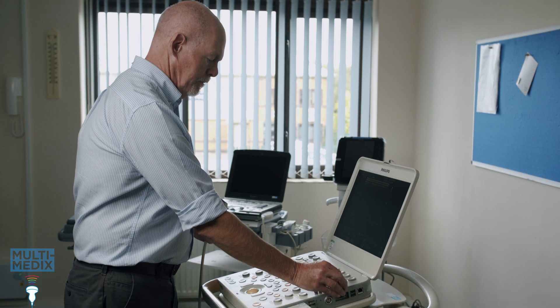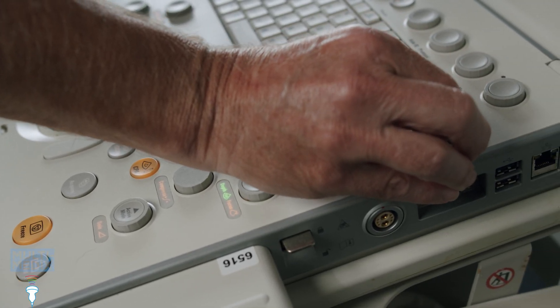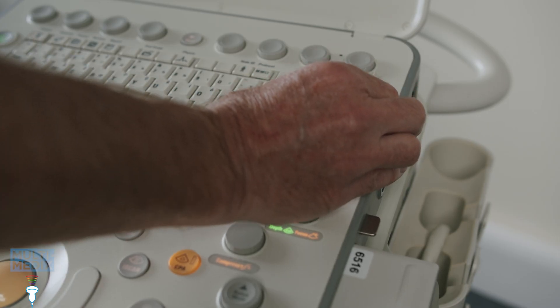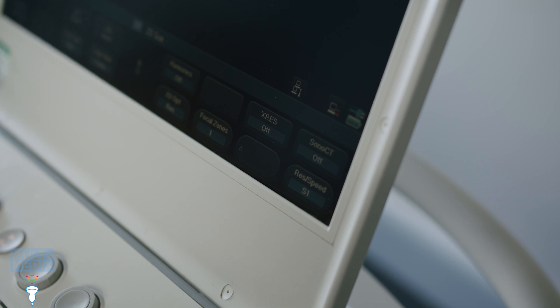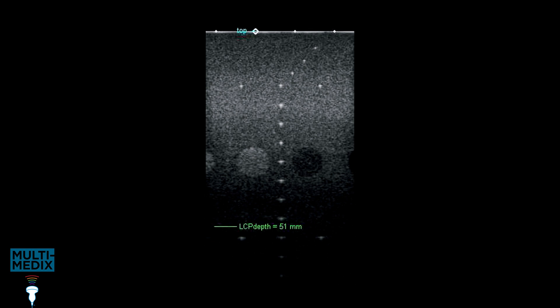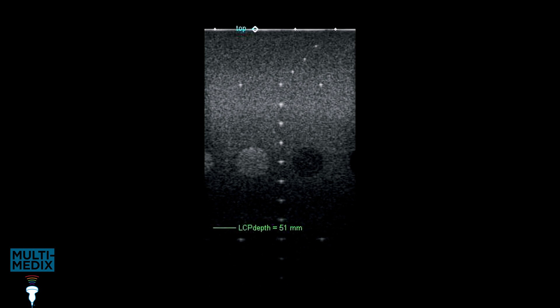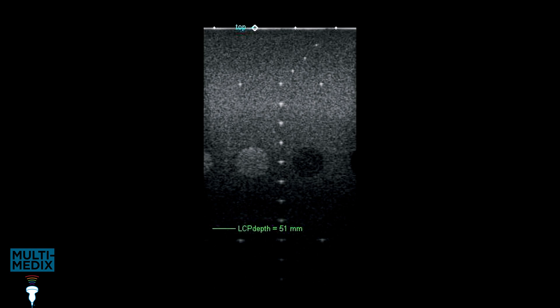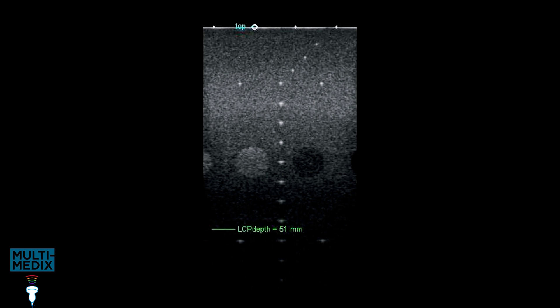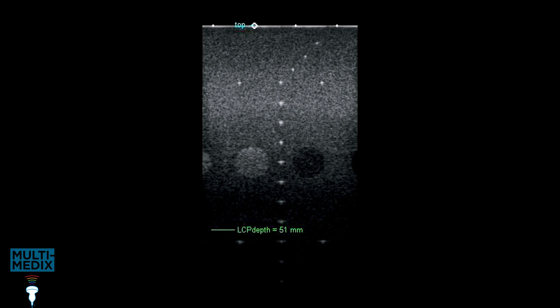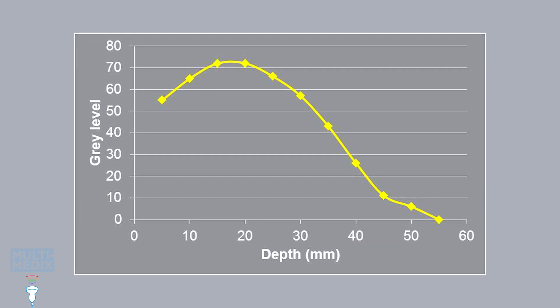To get the maximum sensitivity, output should be 100%. Use mid-range TGC to keep it simple. Automatic image optimization and speed of sound correction should be turned off as they might mask future faults. Penetration depth is the depth where speckle disappears, so the image scale should be set to show this with a bit of leeway, maybe 10%. The assessment of penetration is easiest with a real-time image — we're looking for the depth where the speckle stops being clearly visible across the width of the image, and we measure from the top of the image to this depth. This is quite subjective, so if you have software to do it you'll get a more reproducible result. An alternative is to measure the mean grey level in the image, which is very straightforward with free software like ImageJ.